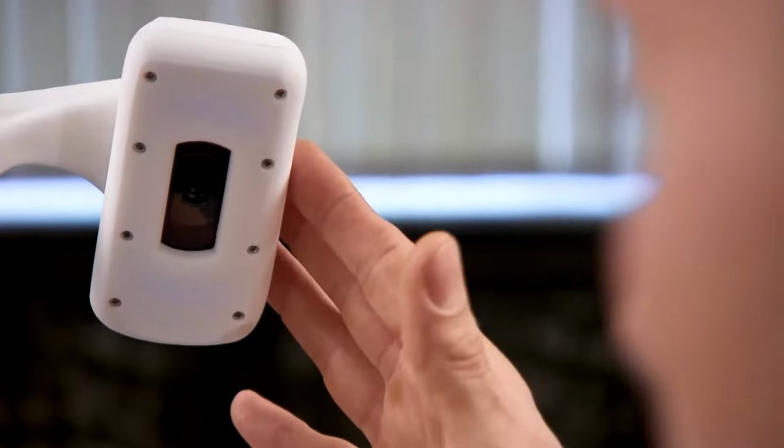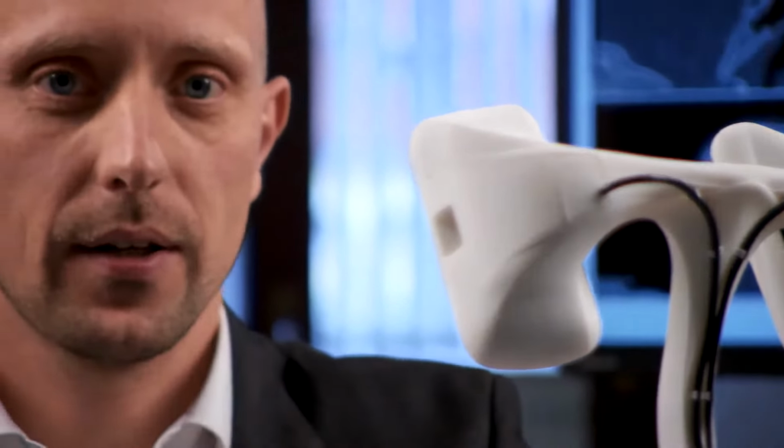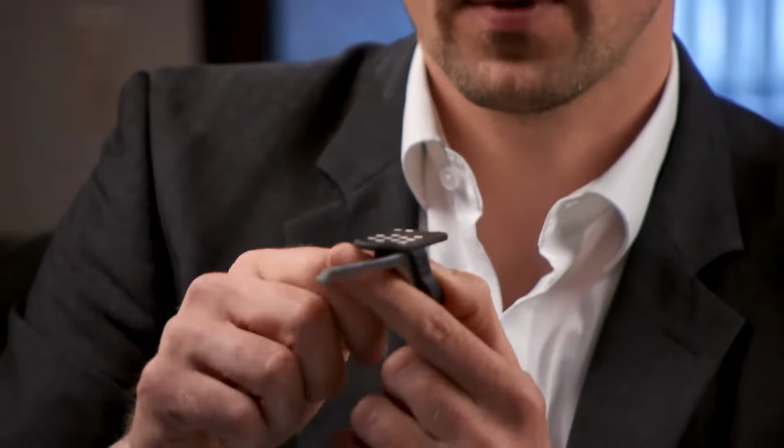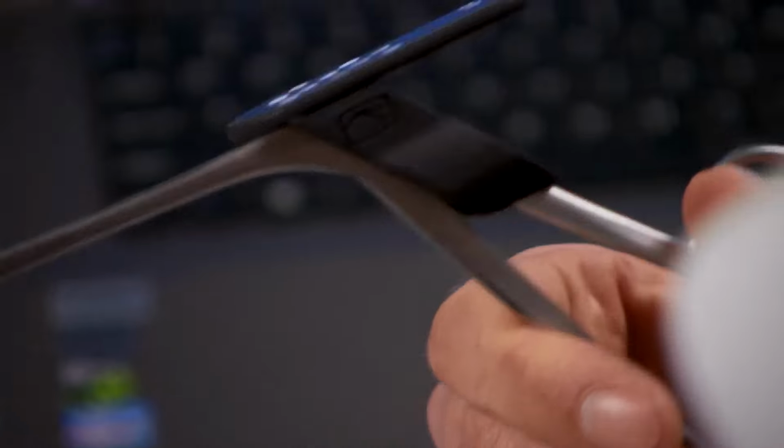This is the PHACON holder with a holder tray in order to fix the artificial model. This is the PHACON tracking camera. With this tracking device you can track various instruments, your own instruments. Therefore we provide different trackers, for example a tracker for a grasper, and then you have a navigated grasper.